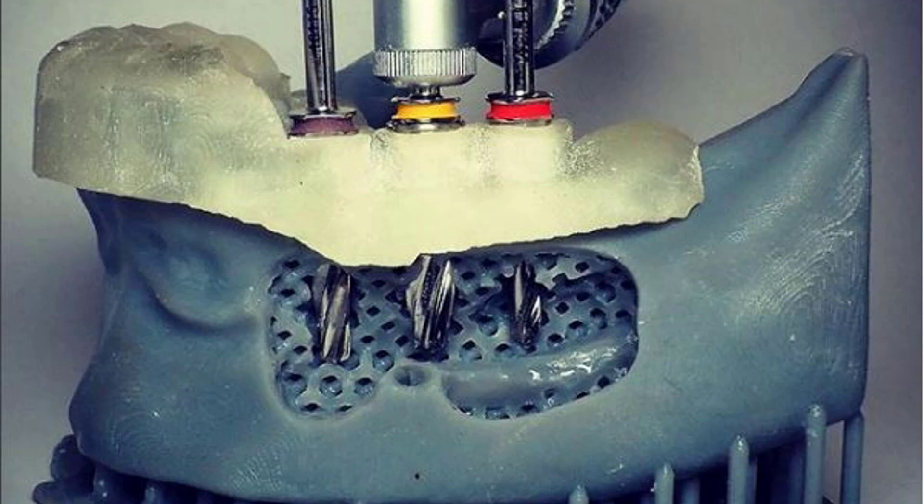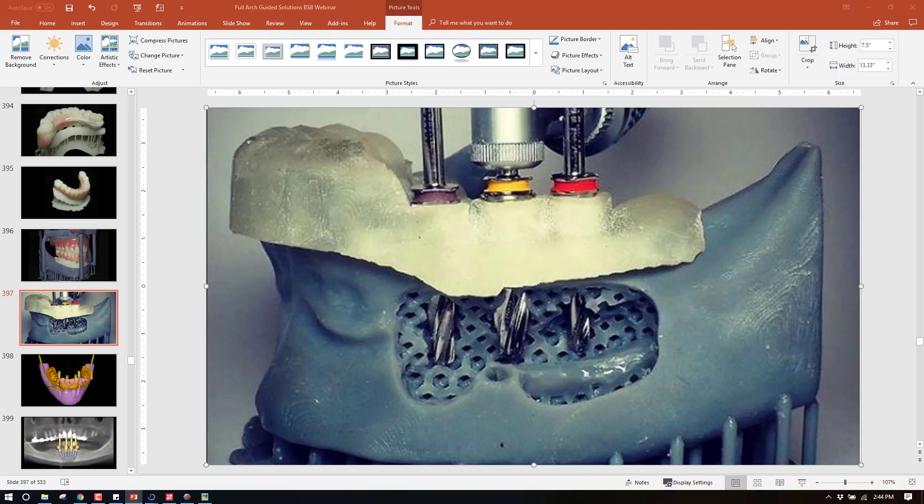For my live courses I've made quite a few of these in different configurations: all-on-fours, tooth-borne cases, all kinds of things. They really give a realistic drilling experience because you'll have the hard cortical boundary and then you get into the cancellous bone, so it's just a nice option without having to drill into a solid model. Let me show you how I go about doing that.